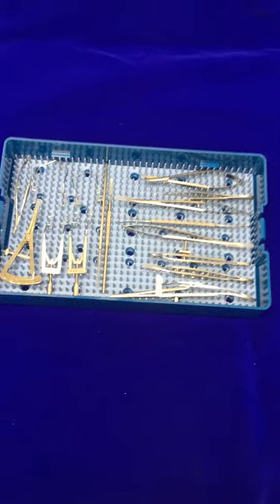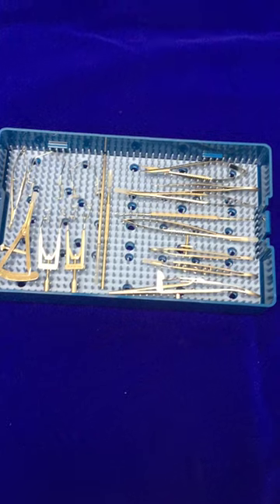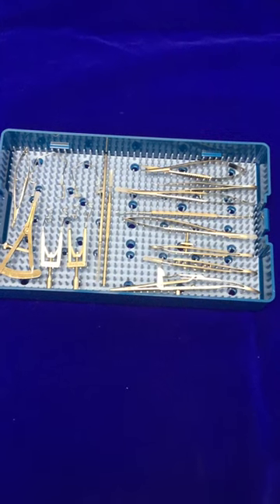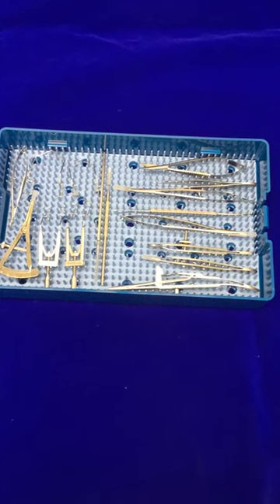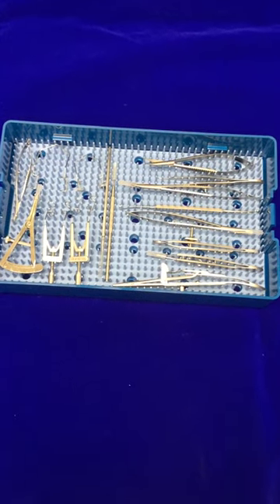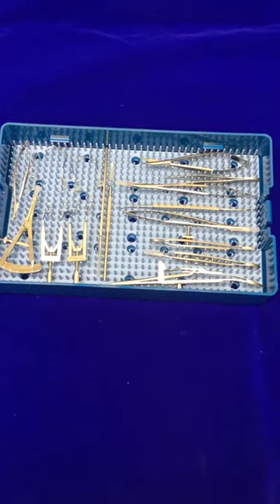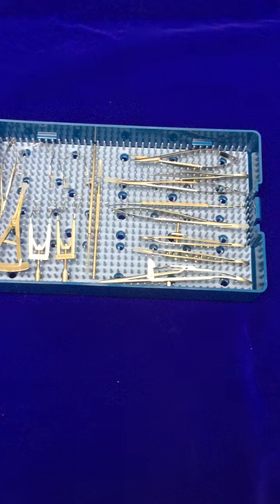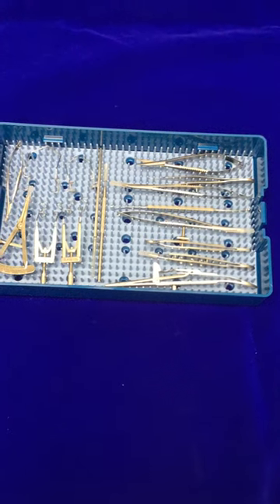As you can see, it can hold up to 15 to 16 instruments comfortably depending on the size of the instruments, maybe a few more.